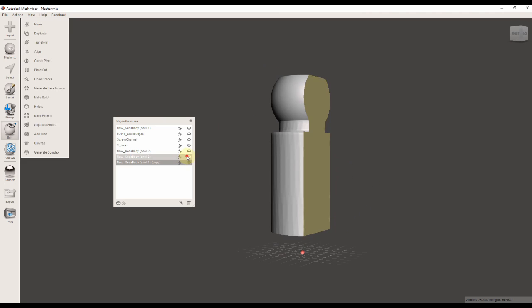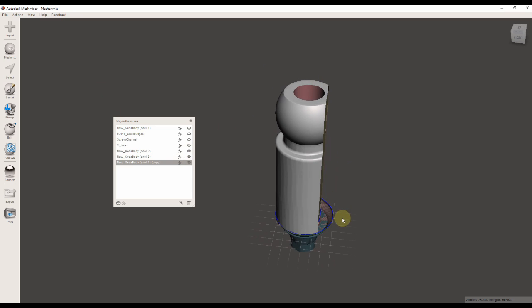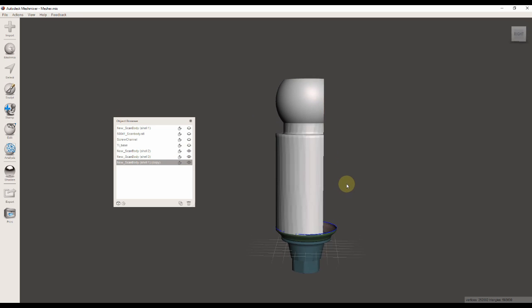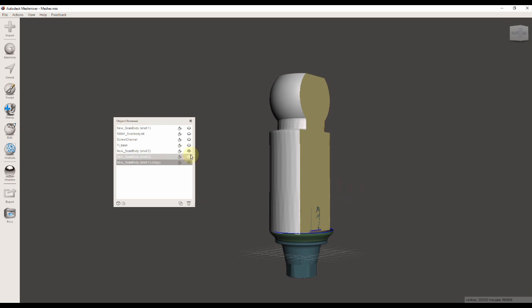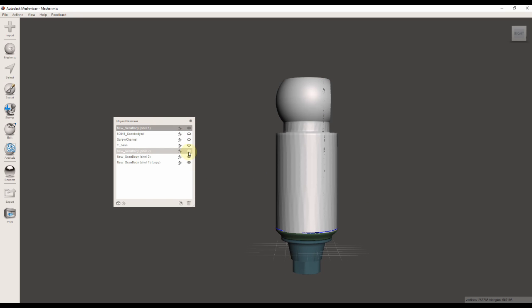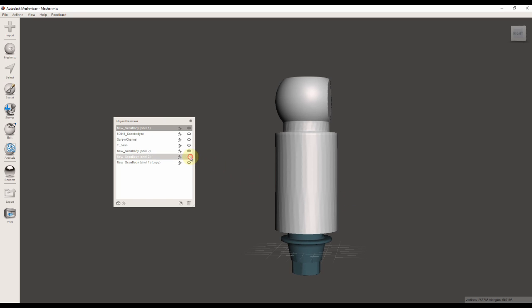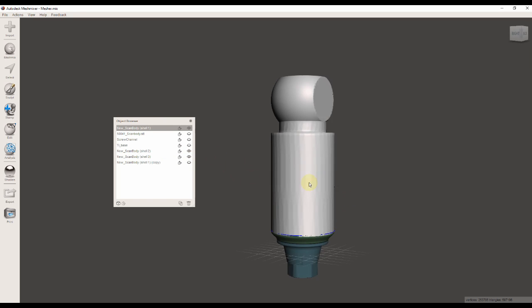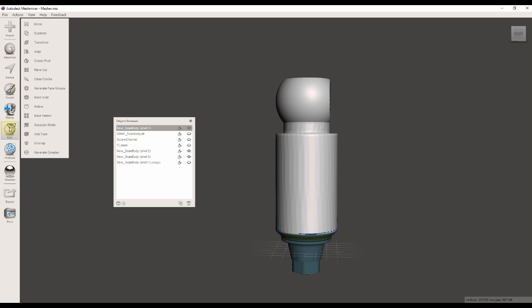When I like the modification, I'm going to accept the plane cut and select the copy of the scan flag. I can again use the plane cut tool under Edit, and I'm going to cut another plane, but this time in a perpendicular method to fill the void that I created on the bottom of the side. You can modify your scan flag in any manner that you want.